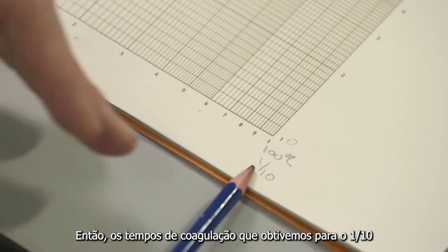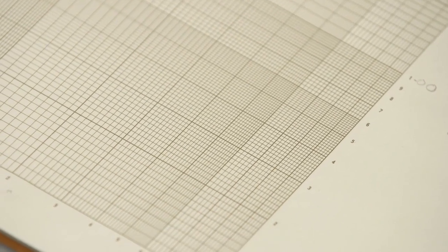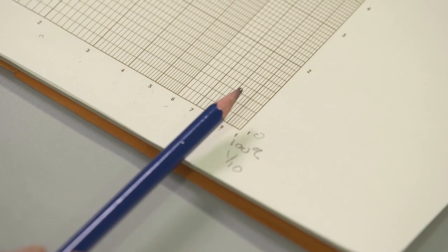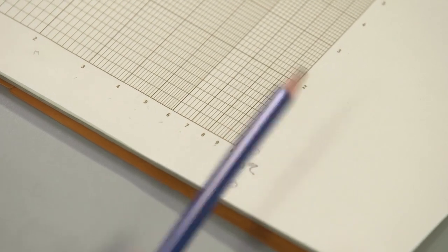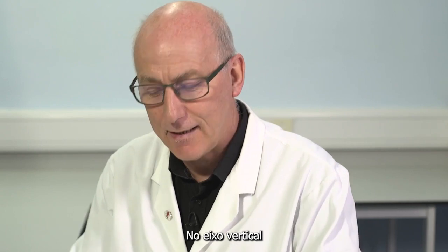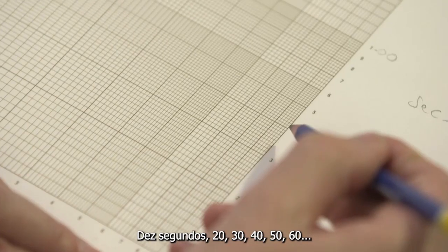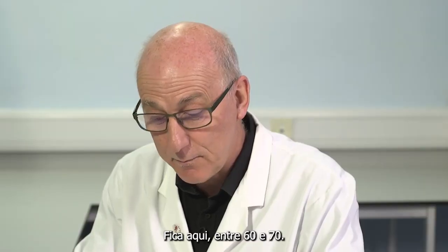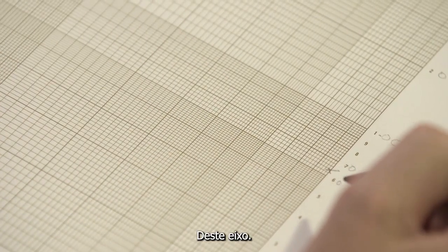So the clotting times we obtain for the 1 in 10 are on this location. Which was the clotting time for the standard 1 in 10 dilution? 63 seconds, 64 seconds. Very close, so we should take an average, 63.5 seconds. So we need to locate on the vertical axis, where is 63.5 seconds? 10 seconds, 20, 30, 40, 50, 60, 70. It sits here between 60 and 70, very close to the 64 point on this axis.